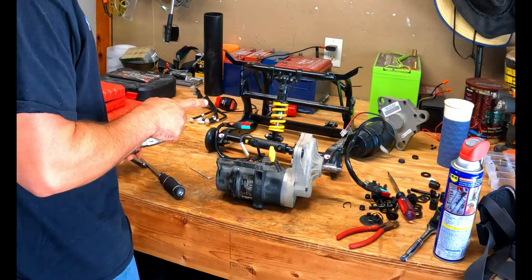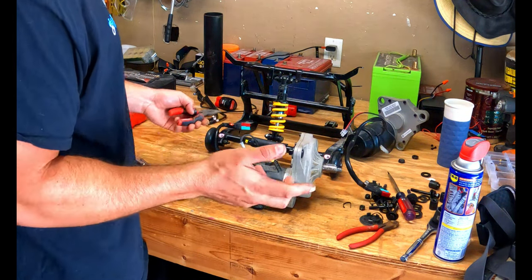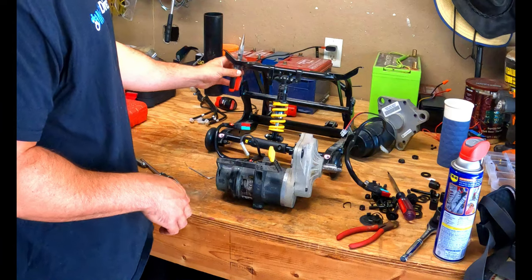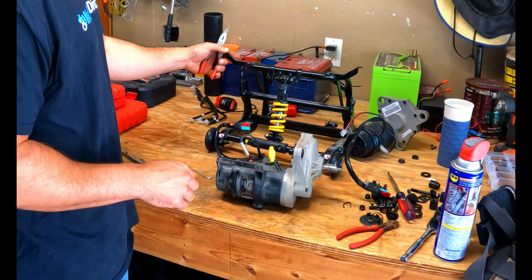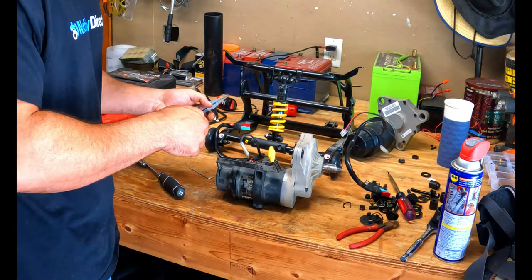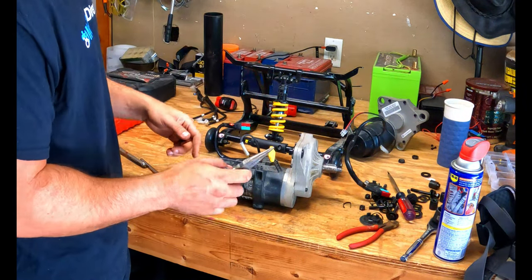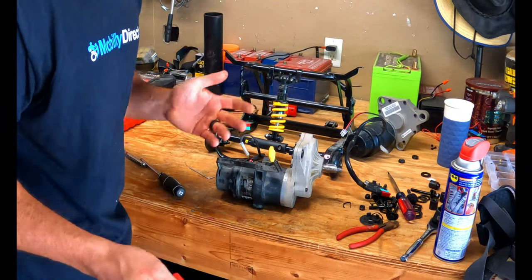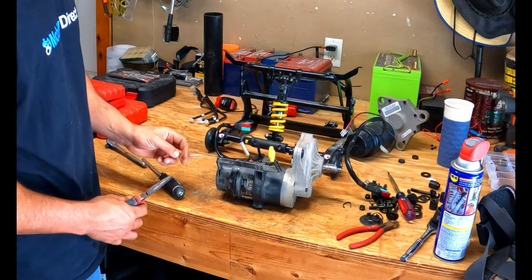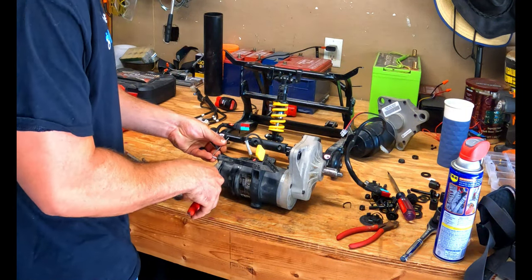This is the right motor — we just did the left motor. You can tell by briefly putting it up against the holes: make sure the brake lever is in the right position, about right here behind this arm. If you temporarily place the body panel on, you'll know it's correct if the body panel goes on, because there's a small hole for the brake lever to fit through. I'm going to fast forward through removing the two screws and the bracket for the right side.